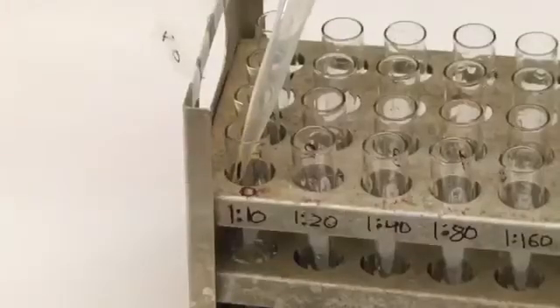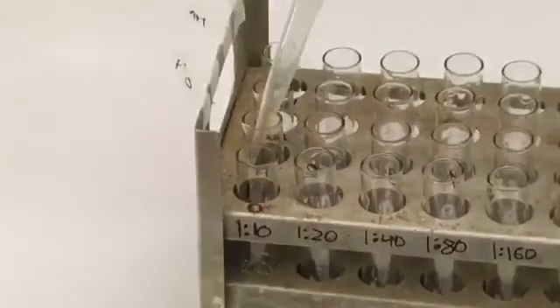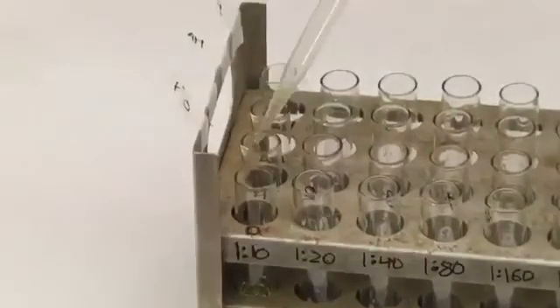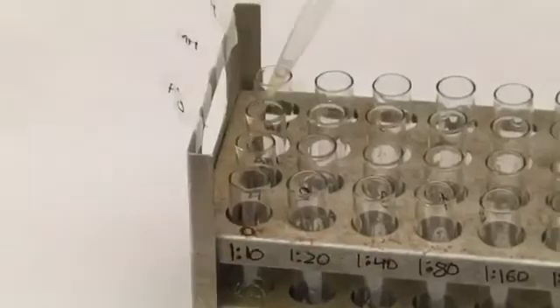To tube number 1 of all sets, add 0.1 ml of serum sample to be tested and mix well.